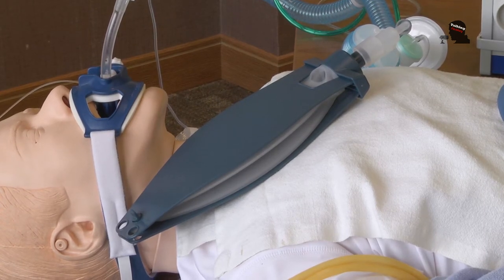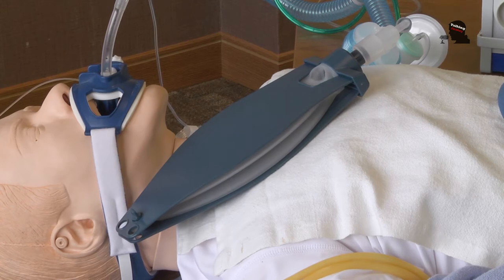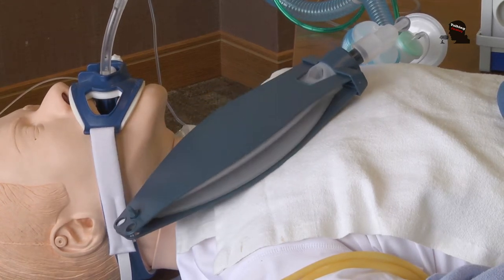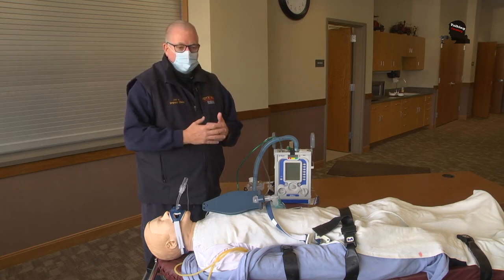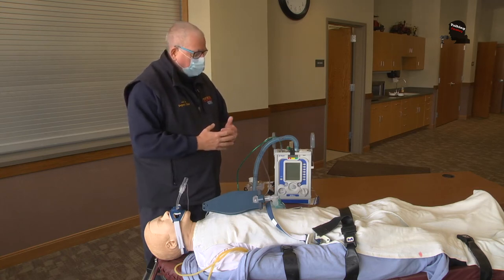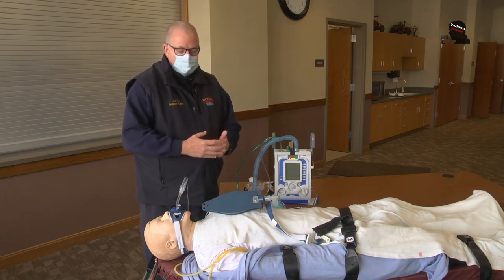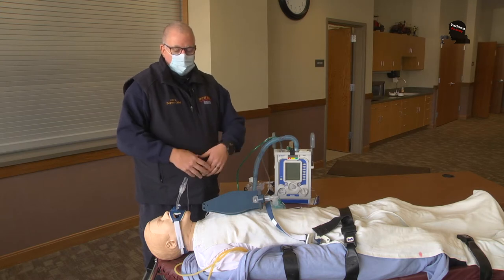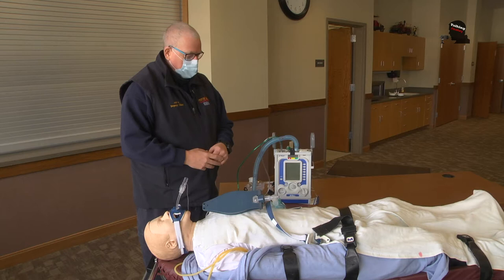In a normal cardiac arrest, we're doing bag valve mask ventilation. Sometimes that can be inconsistent, especially just driving down the road with lots of other stuff going on in the ambulance. The vent allows us to set all of those parameters for a patient based on their weight and height, set the vent up, and it breathes for the patient on its own.